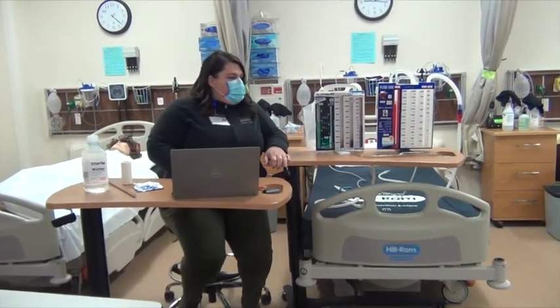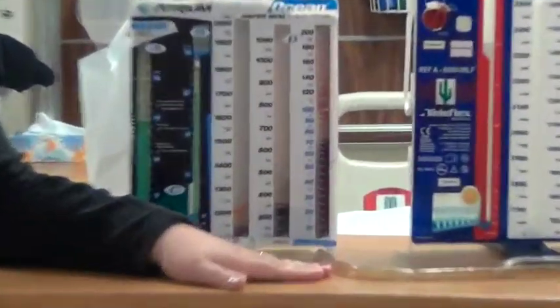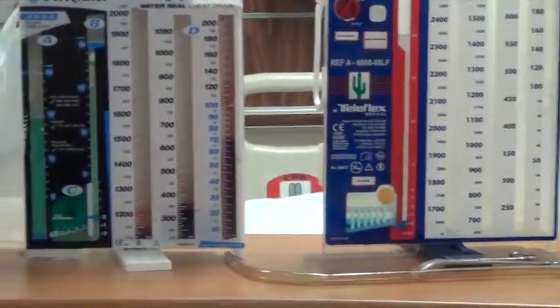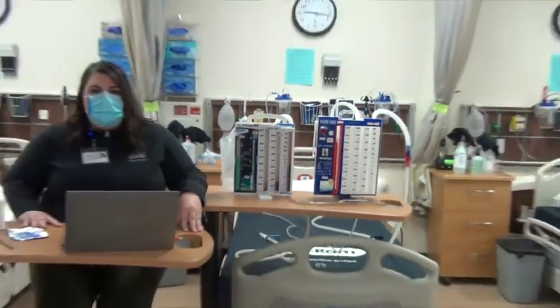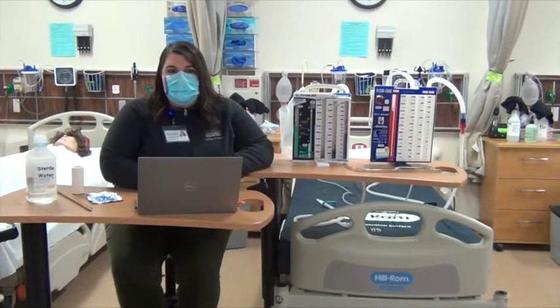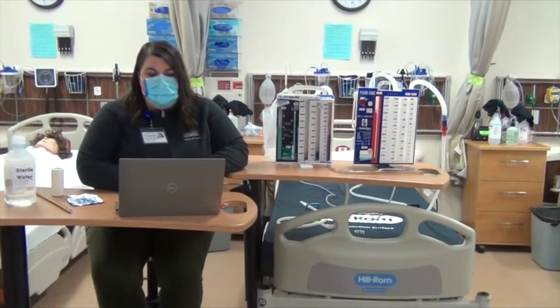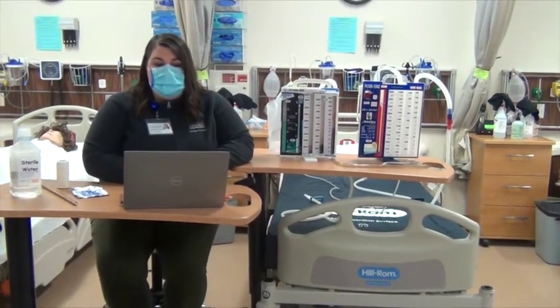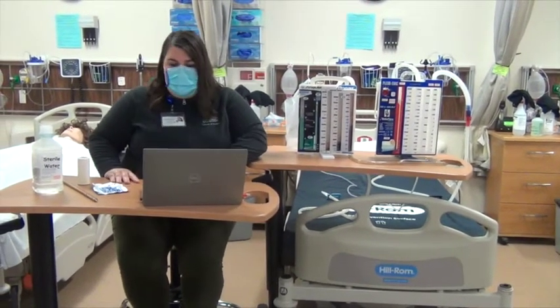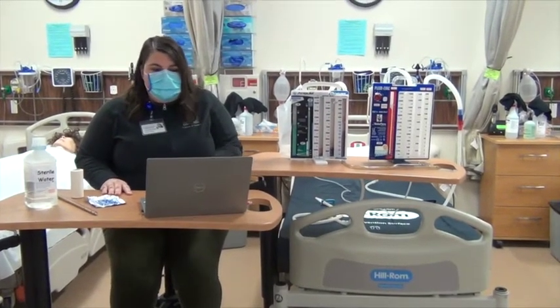So we're going to demonstrate the difference between a wet and a dry system, as well as show you a little bit more about the chest tubes, how they connect to suction, and then also share a little bit of lecture material for you as well. All of this information is in your lab supplement, so make sure to review that if you have any questions outside of this lecture. Otherwise, it's strongly suggested that you take notes while you are listening so that you can do well on the quiz and on the final exam.